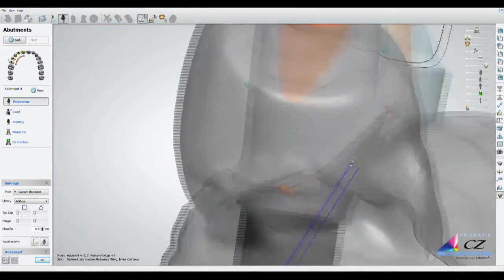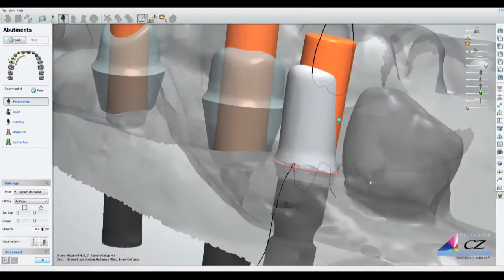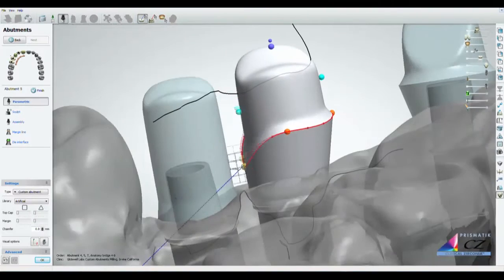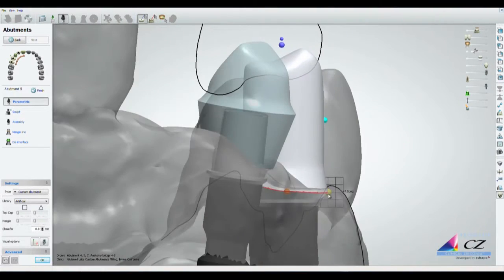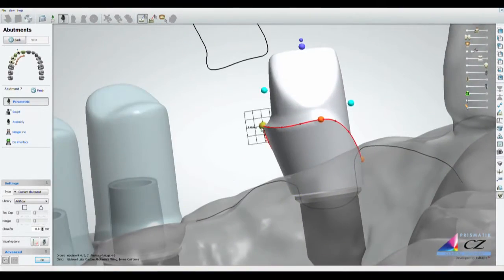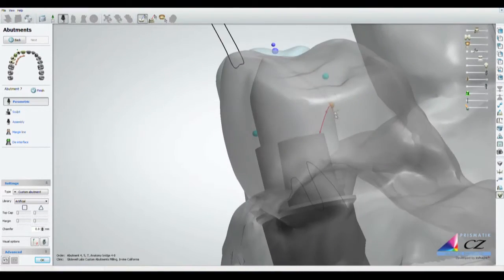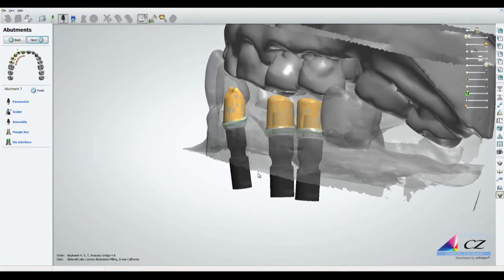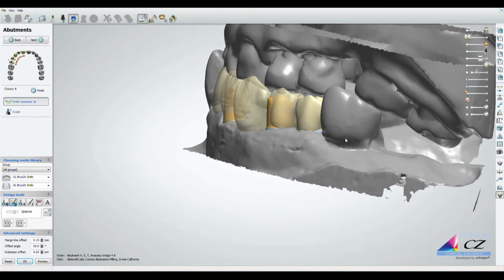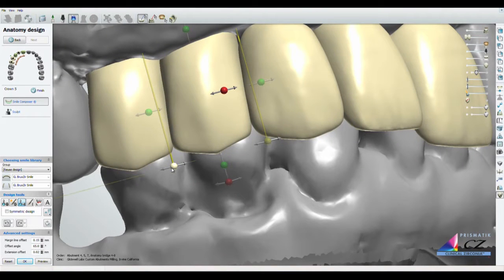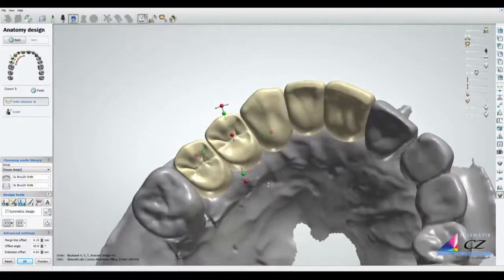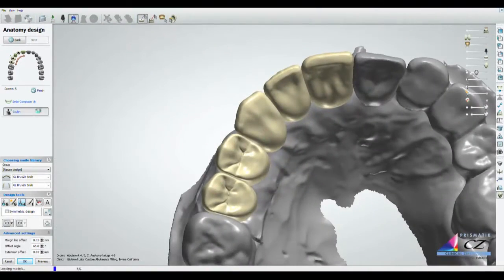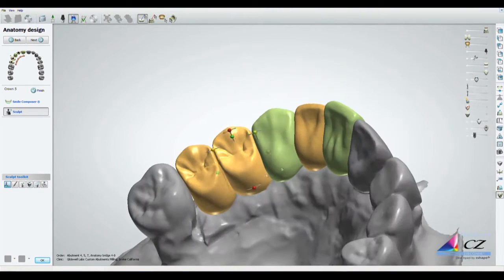The ideal abutments are created from the standard abutment library based on the system chosen by the doctor. The prosthetic teeth are selected from a digital crown library, including three screw-retained units and two pontics. The design software generates an ideal tooth form for each individual unit of the bridge, then the technician positions them onto the virtual model.